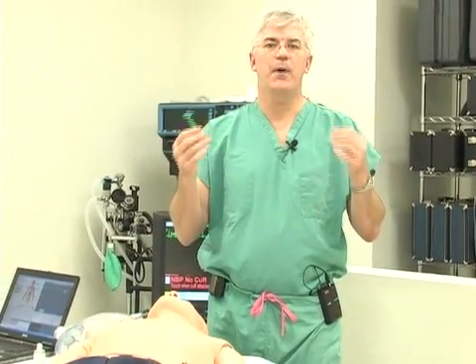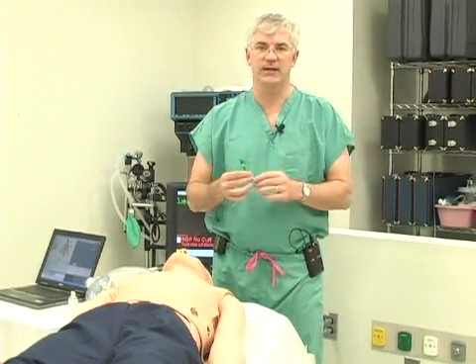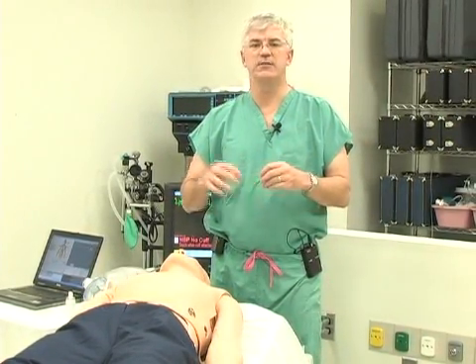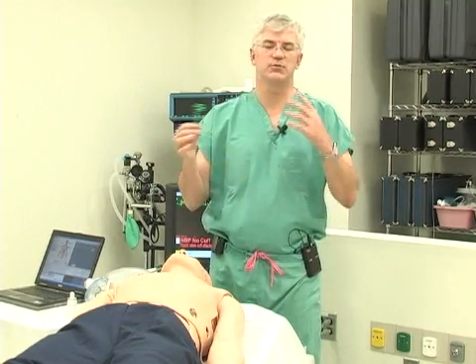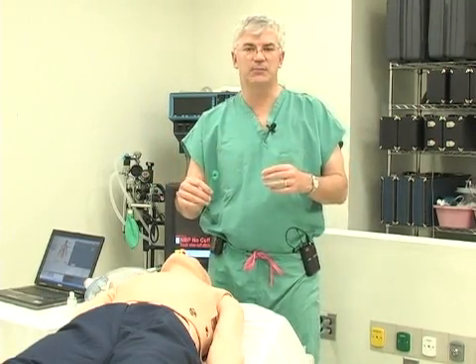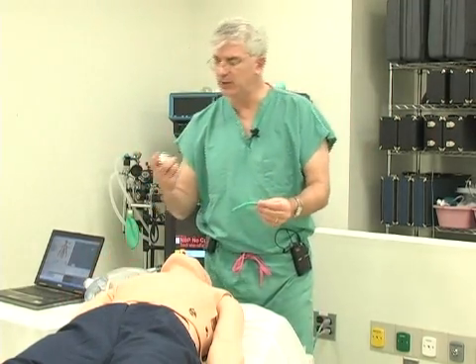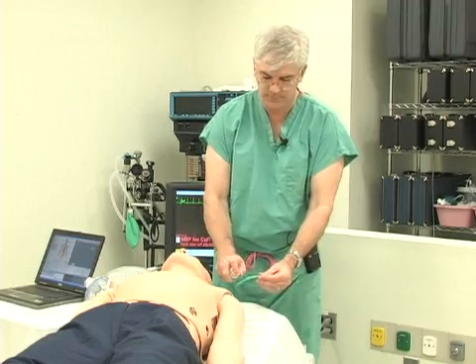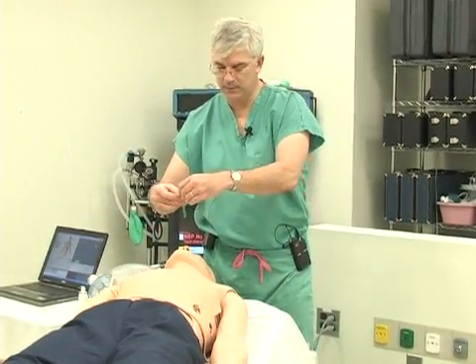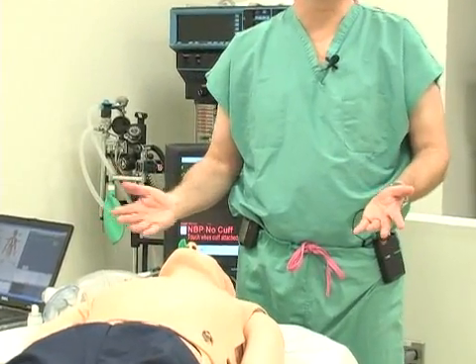The nasal trumpet is used when a patient is obstructing but there's still enough awareness that they would fight you if you put an oral airway in. This is familiar to any anesthesiologist — the patient is waking up from anesthesia, obstructing a little but partially awake, so you put in a nasal trumpet to relieve the obstruction. Put a little lubricant on, make sure it slides in easily, and that should relieve the obstruction.